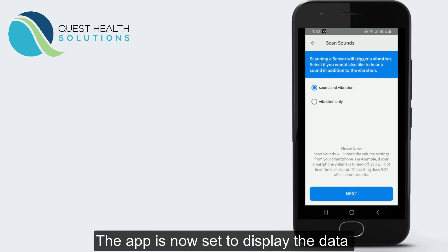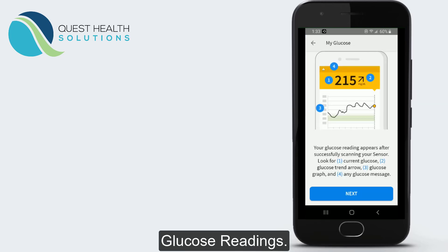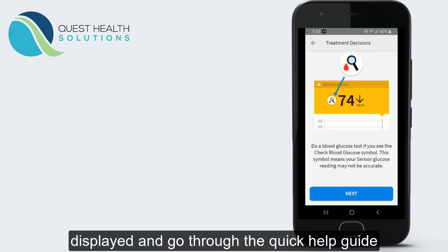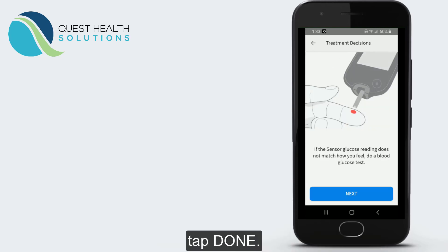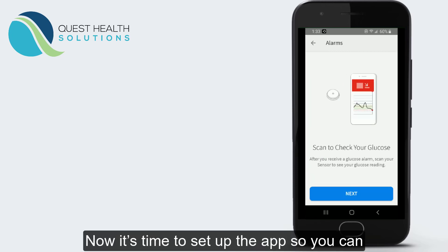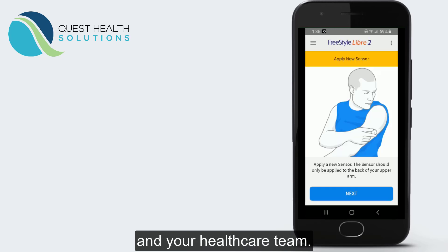The app is now set to display the data you'll see when reviewing your glucose readings. Once you finish reviewing how your data will be displayed and you go through the Quick Help Guide, tap Done. Now it's time to set up the app so you can share your glucose data with Quest Health Solutions and your healthcare team.